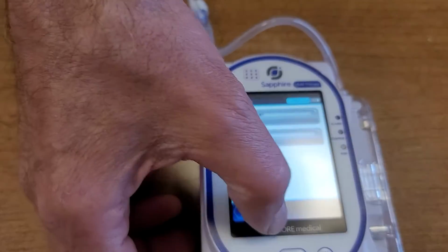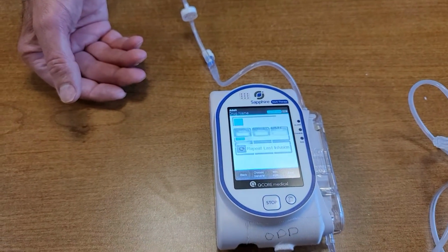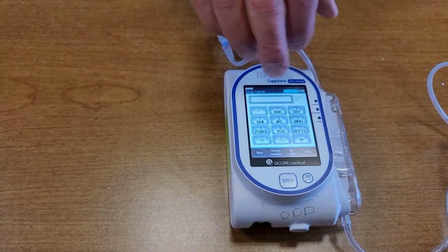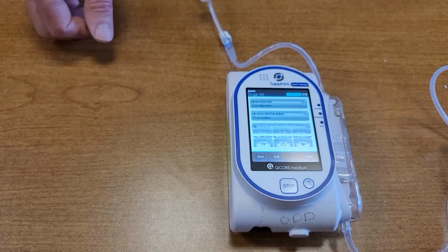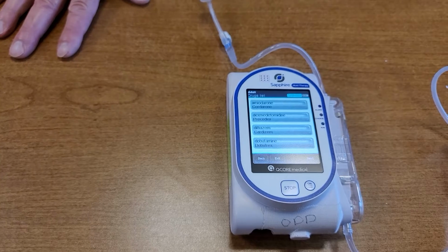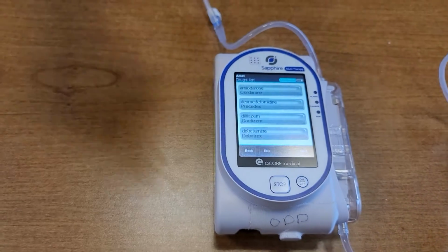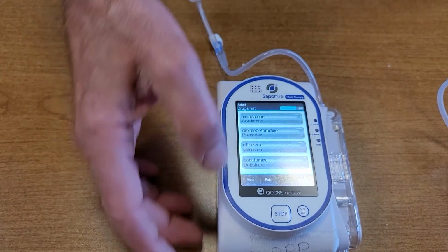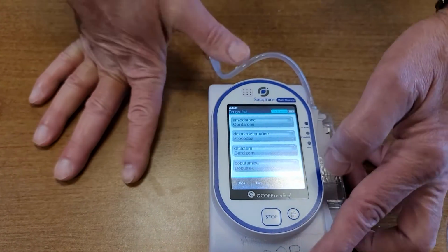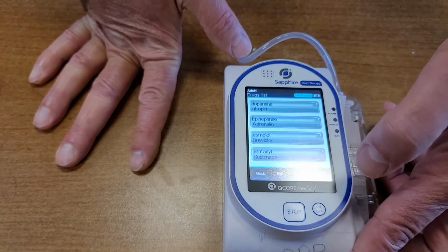If you don't like doing it that way, go to the new infusion. If you want to search it another way, let's just say instead of hitting whatever letter I want to find, I just hit find. I can scroll through the whole library if I want to, or I can sort it out by letter. Whichever way your little heart desires, knock yourself out. So let's go to this. The epinephrine is not on the screen. I'll hit next. Still not on the screen. It is in there right there.